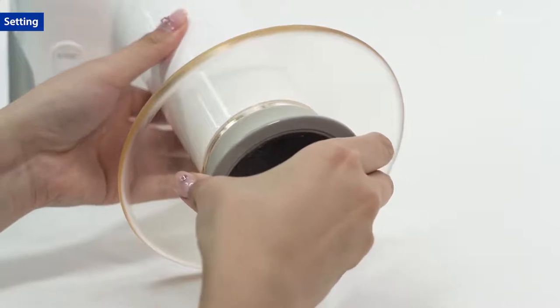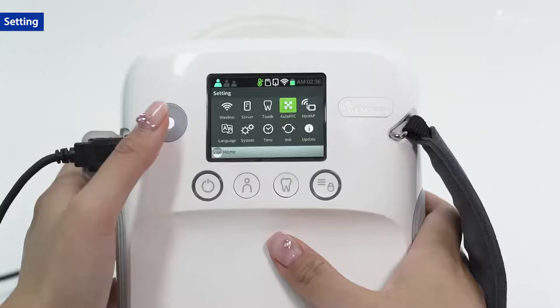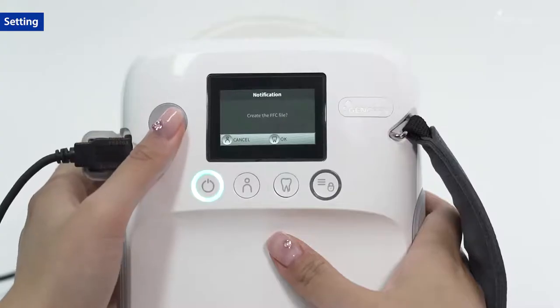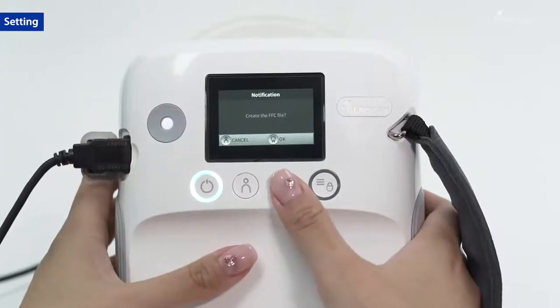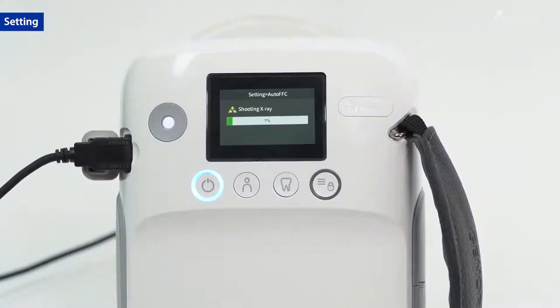Sync the sensor with the portable to use for operation. Generate an FFC file for sensor registration.